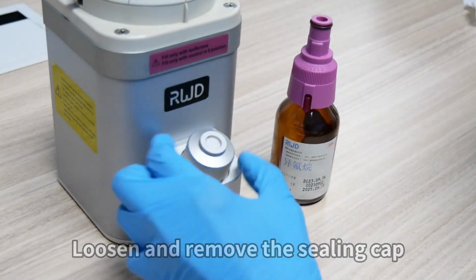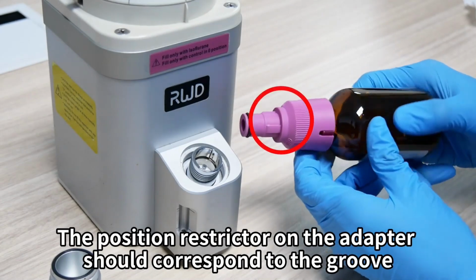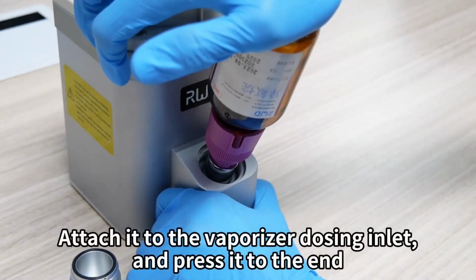Loosen and remove the sealing cap. The position restrictor on the adapter should correspond to the groove. Attach it to the vaporizer dosing inlet and press it to the end.